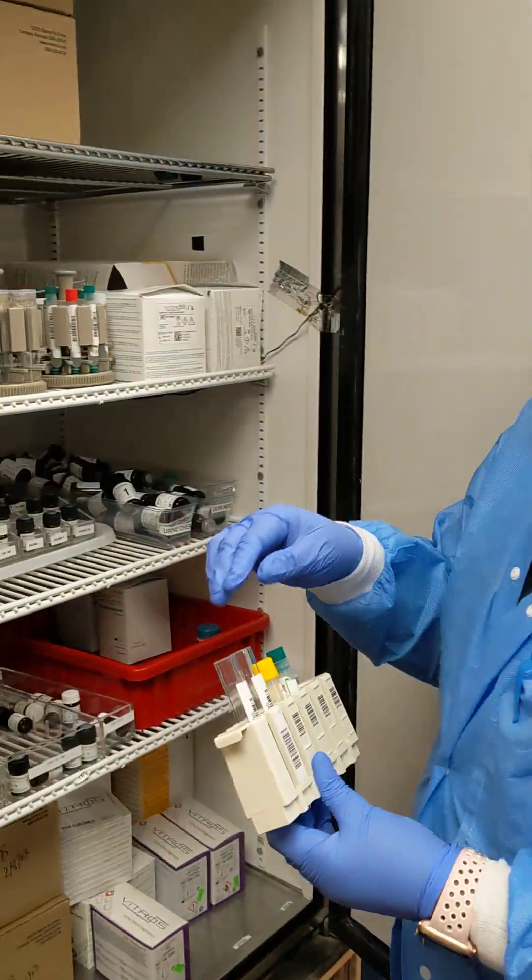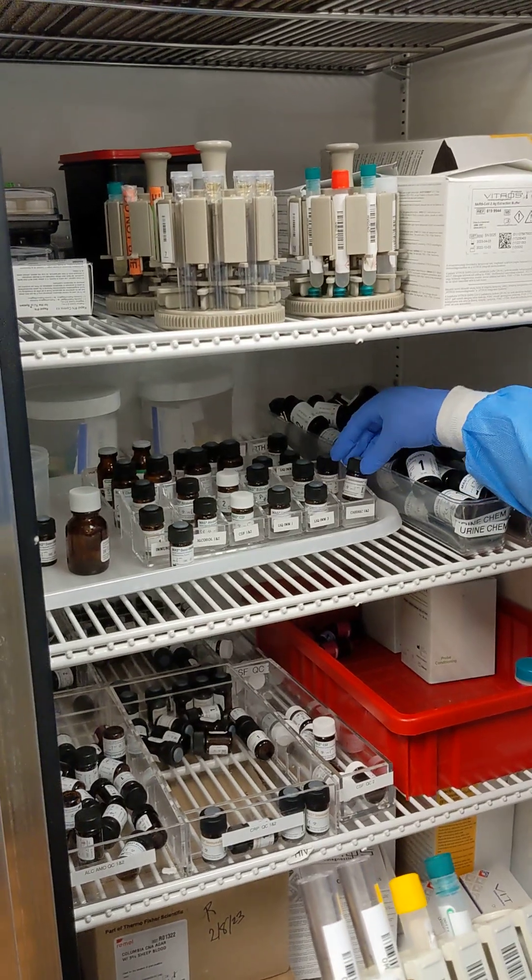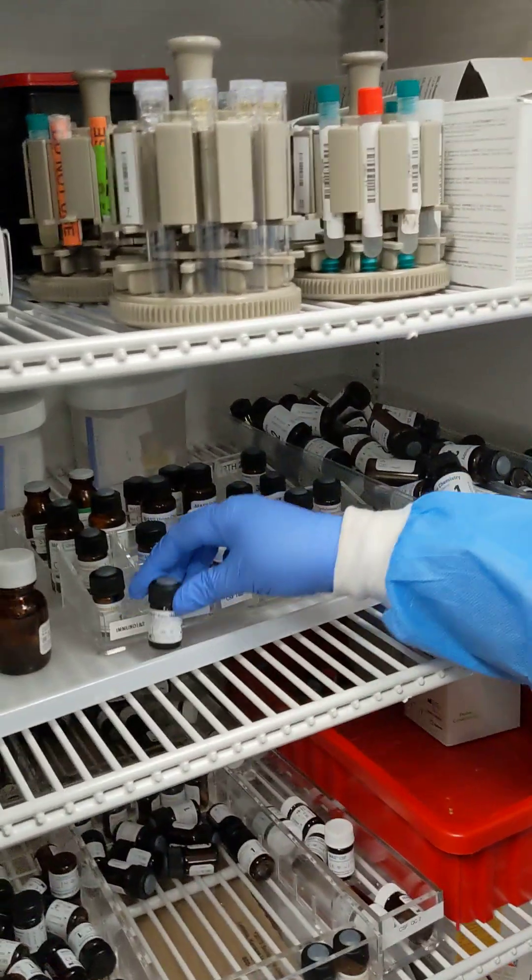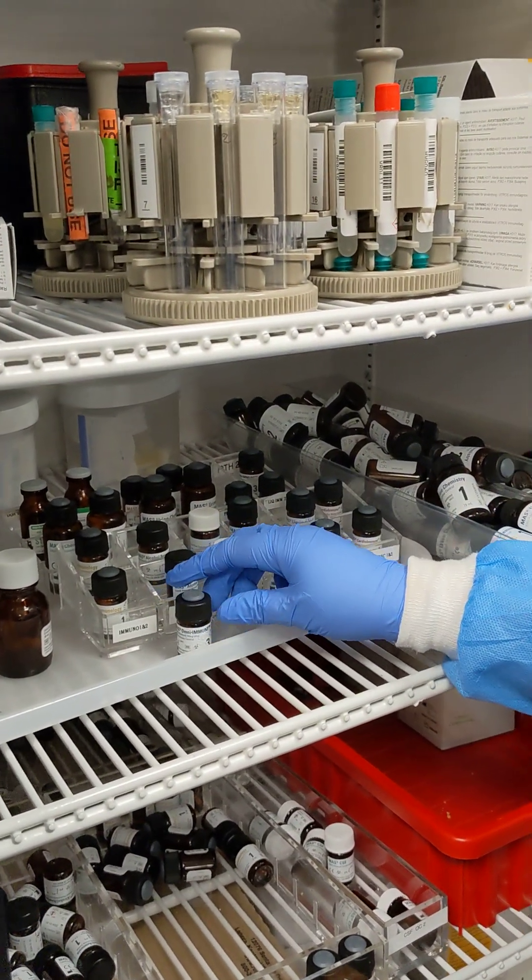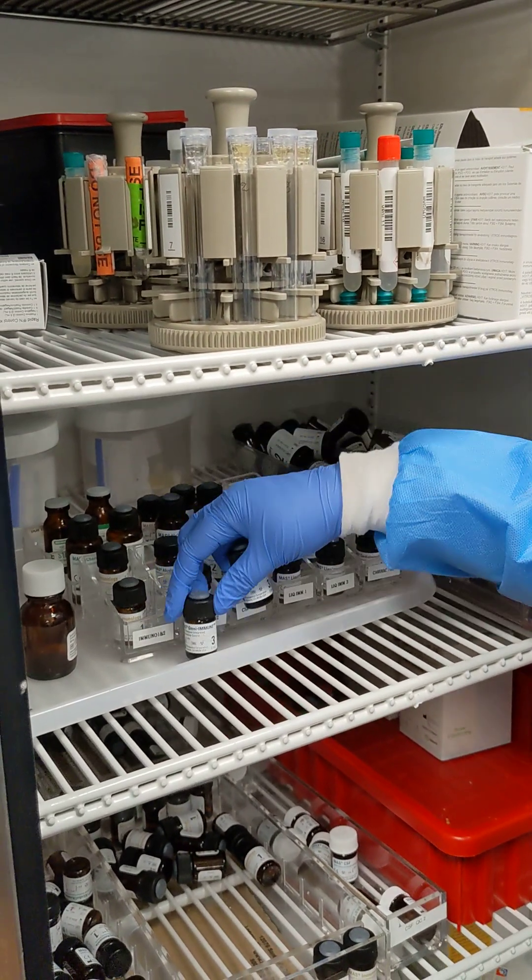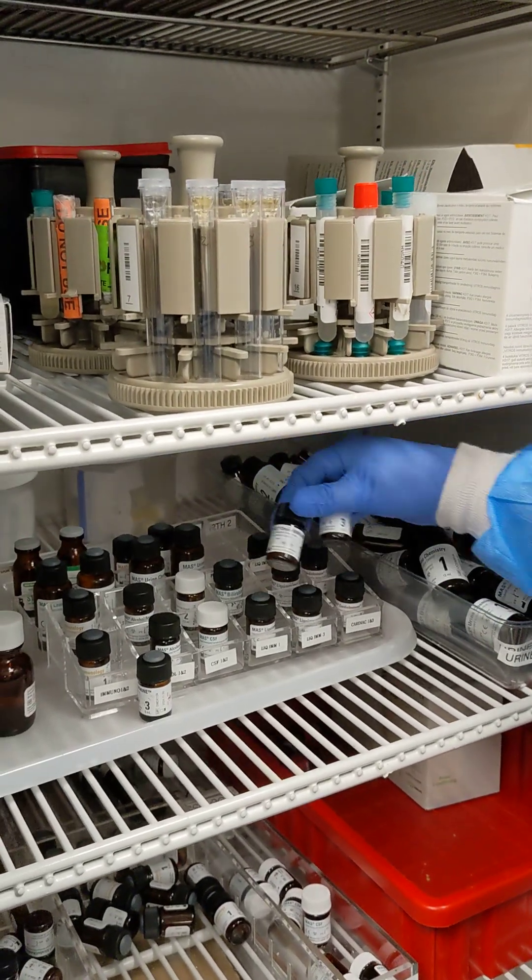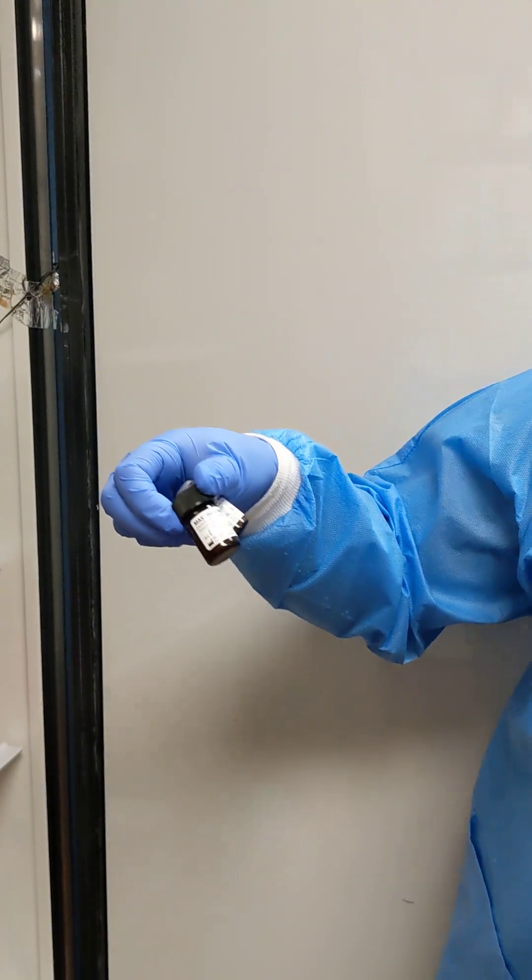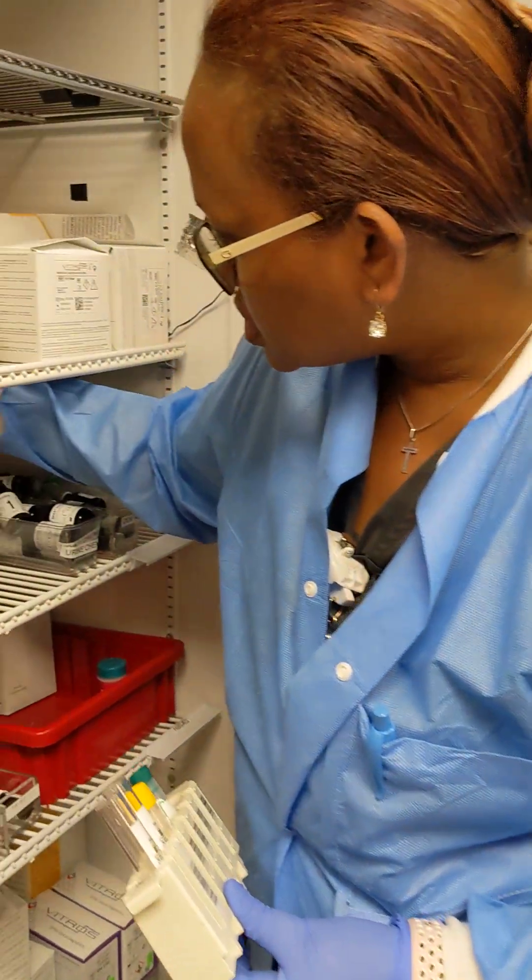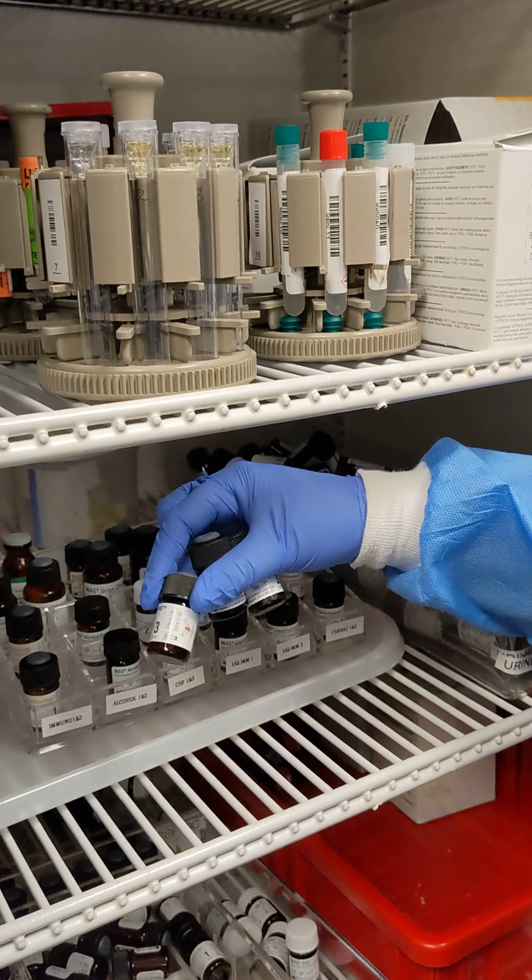QC here and this is empty so the Omni is going to go Omni level 3, 1 in 3. I don't know why this is here anyway.